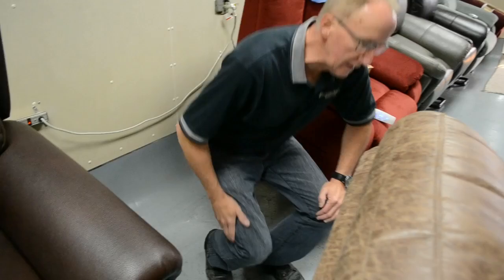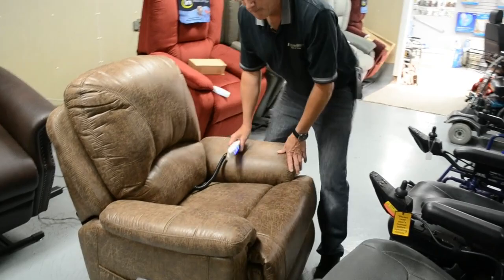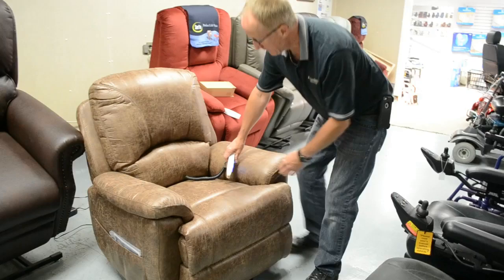You can see our pendant is lit up. Put the chair to its final position and then simply push the buttons and you're home free.